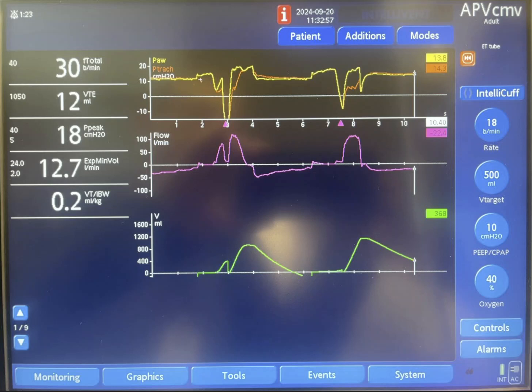Following through, you can see there is a drop in pressure — likely by the patient, even though we don't see the pink trigger triangle here. That drop in pressure resulted in inspiratory flow, and you can see an inspiratory tidal volume of around 400.